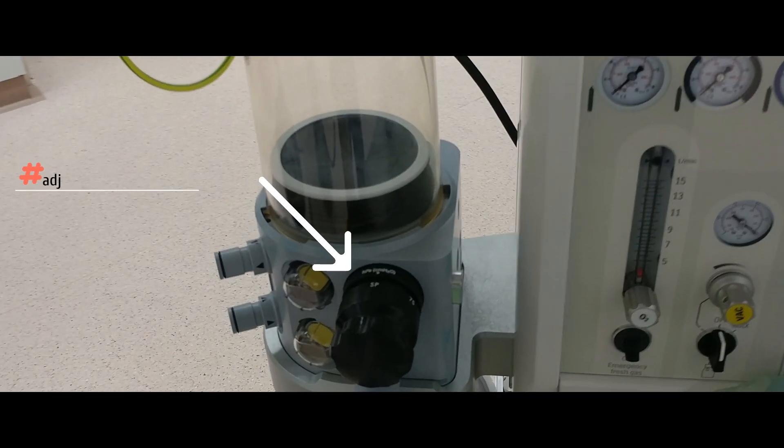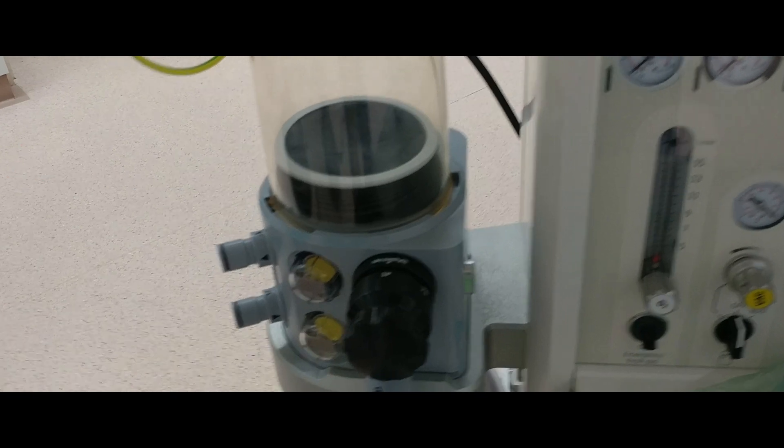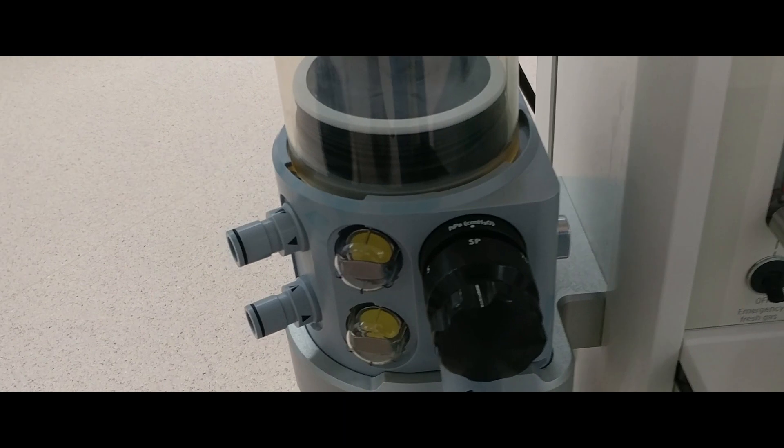First is the adjustable pressure limiting, or APL valve, and it allows a variable pressure within the anesthetic system using a one-way, spring-loaded valve.